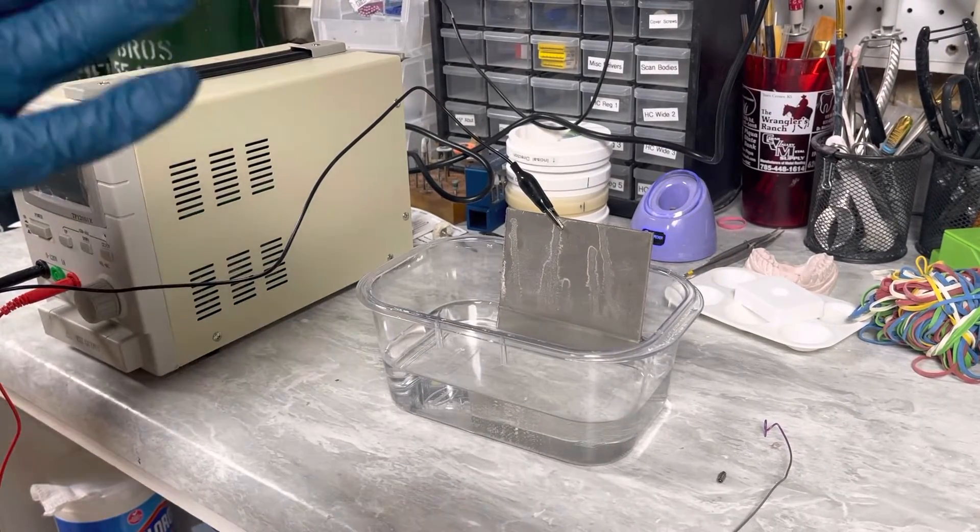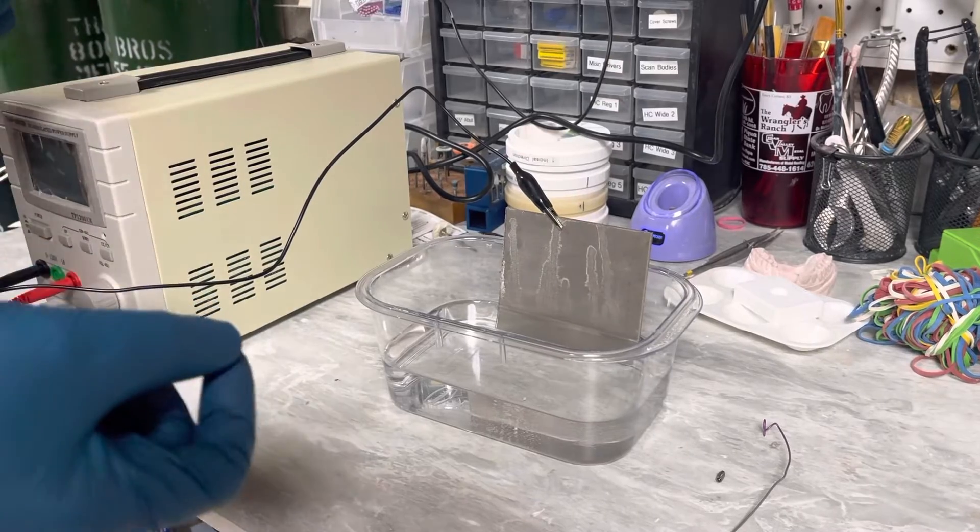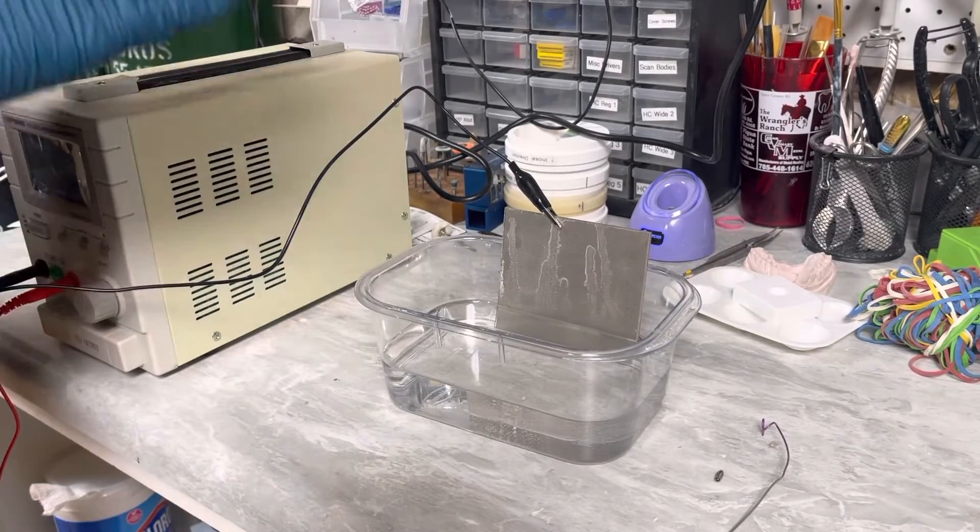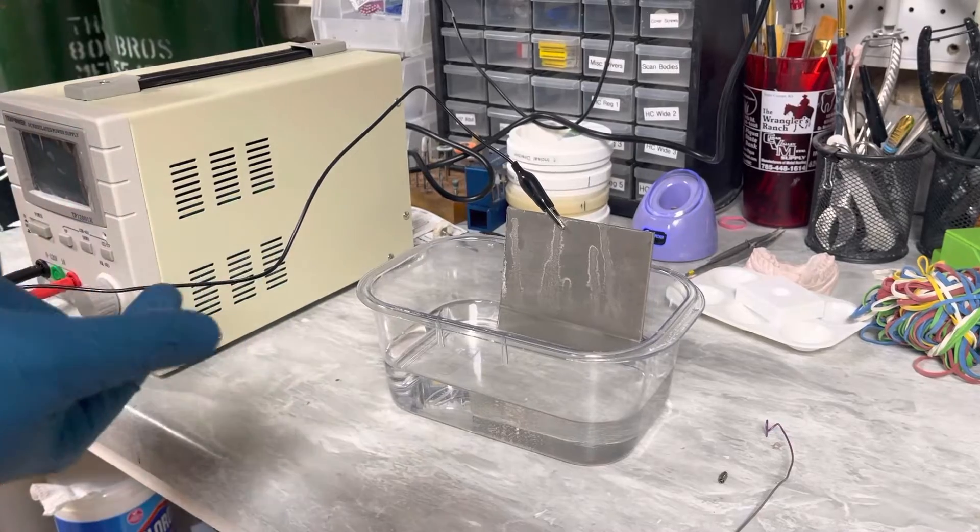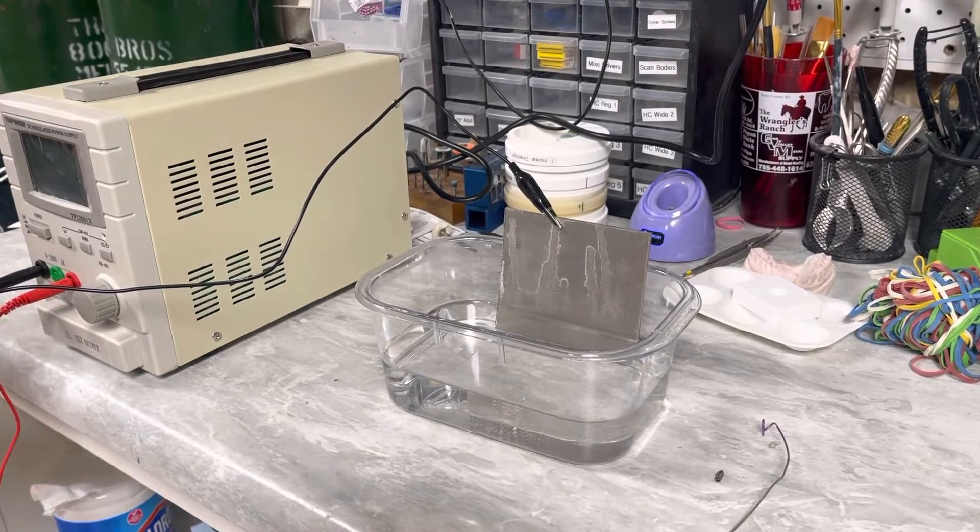Hey gang, Matt here. I wanted to do a video following up. I got a lot of questions on IG about anodizing titanium, so I figured I'd just share a little bit of a video here.